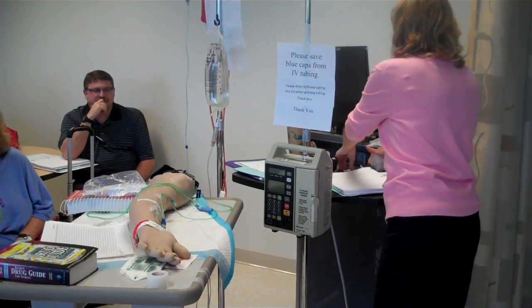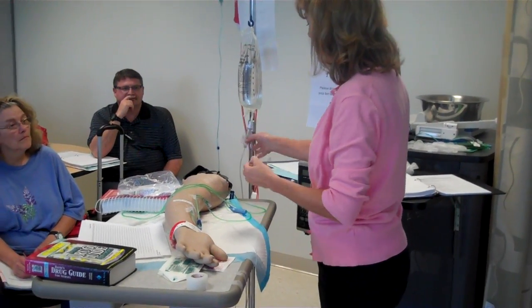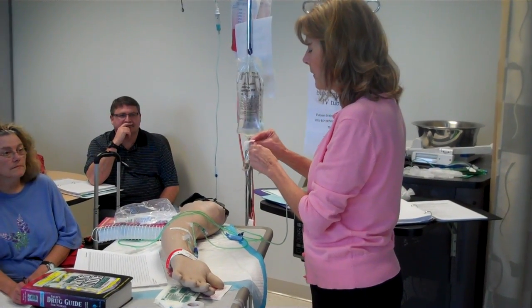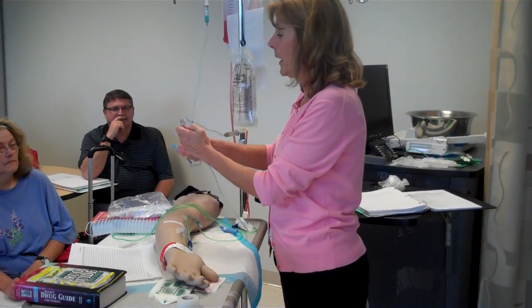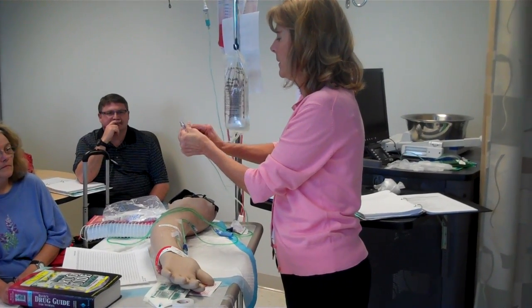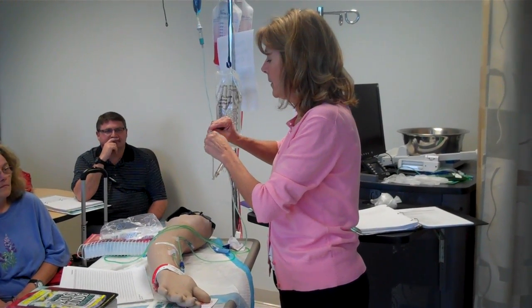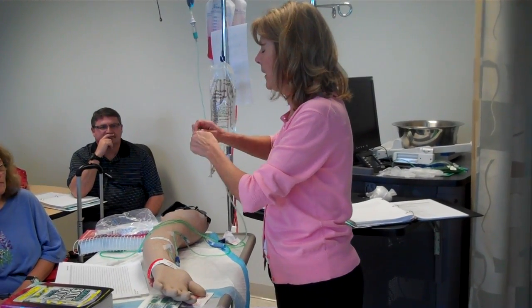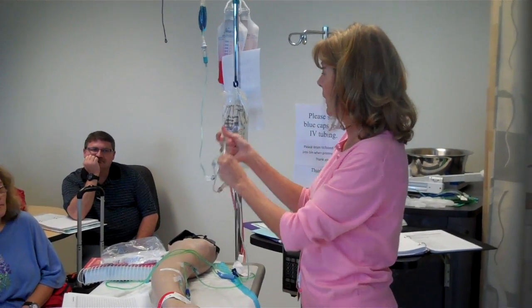Okay. At this point, you need an alcohol wipe, and you're going to go to your upper Y port. Find the one near the top and alcohol that off. You just wipe that off. Then you're going to take this off. You'll find that kind of hard to come off sometimes. Alright, and you'll want to save your caps so you can do this again at home. Put it together. Oh man, shouldn't be that hard, okay? So I put it in and then I tightened it. It does have a Luer lock clamp.